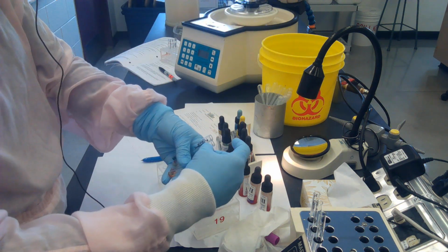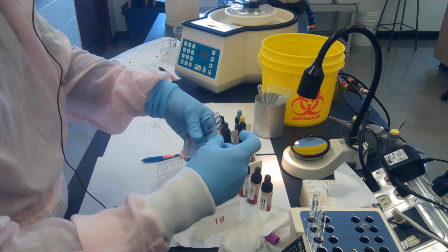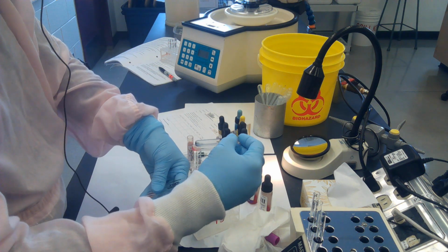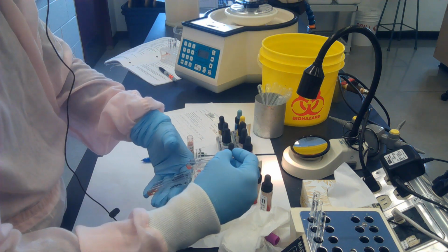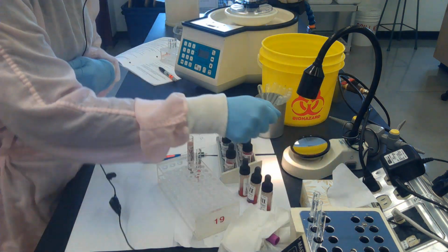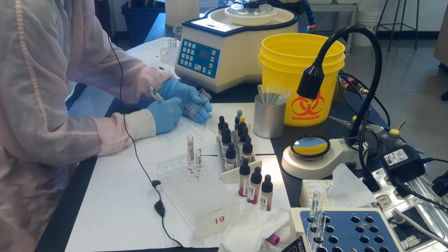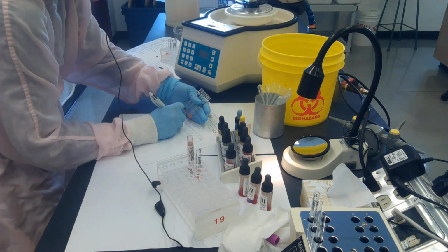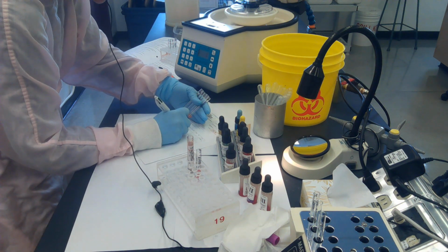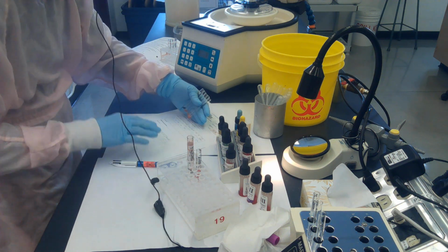And you've done quite a few ABO RH types now. So good waggle technique, which is more like a tremor. The button is facing towards me, so I can see it. And I do a quick read using the agglutination viewer. And I write down my results. So with anti-A, I've got negative, anti-B negative, anti-D, I've got 4+. With my A1 cells, I've got a 4+, and with my B cells, I have a 4+. So I'm going to interpret this right now as O positive and sign it off.